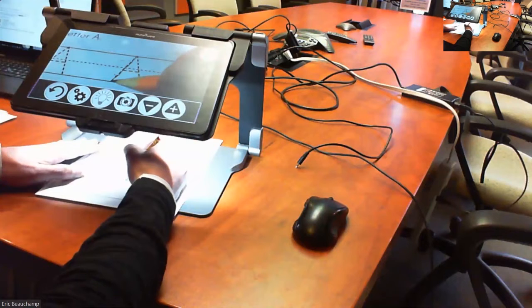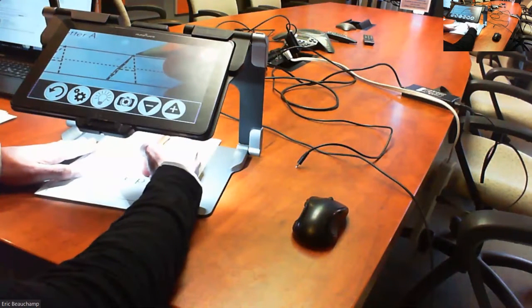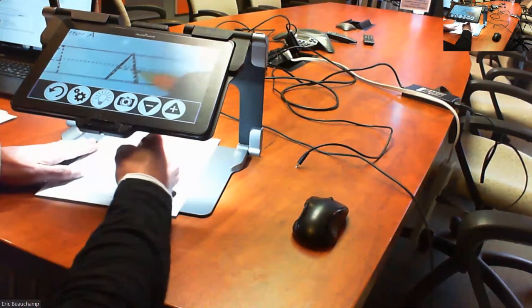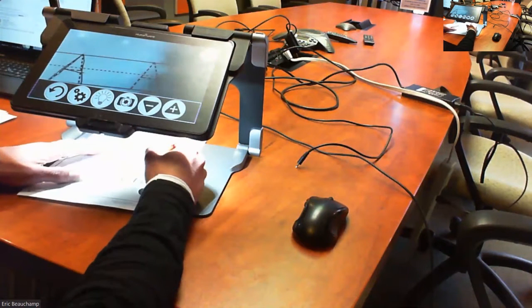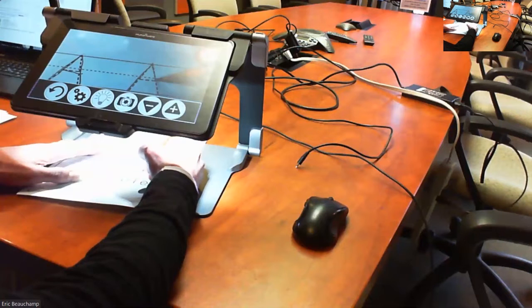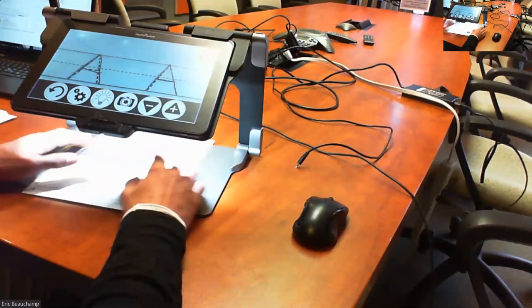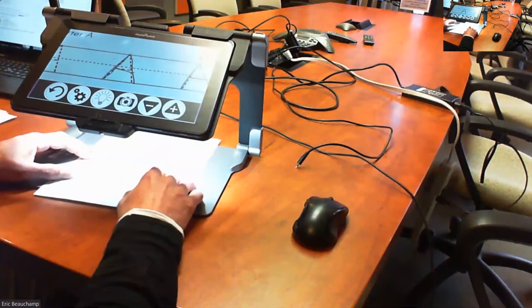So you can put your hand underneath without the trouble of the camera trying to refocus on my hand, and the student can work as he pleases underneath using the screen without having that autofocus going up and down all the time. That's great for manual tasks, writing underneath, doing some painting or something like that.